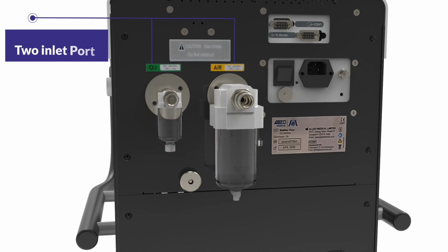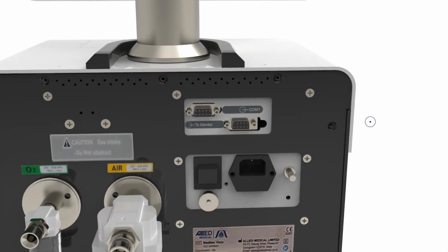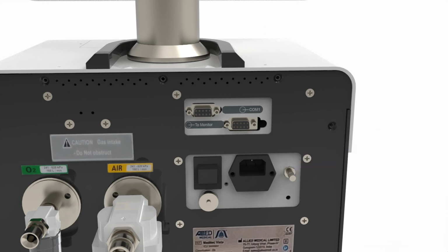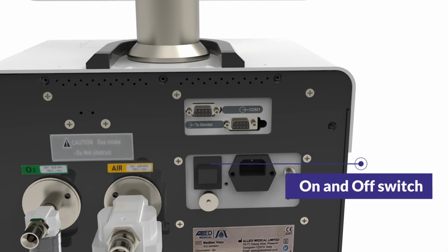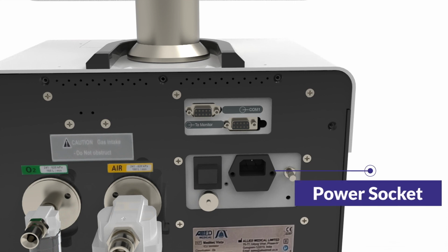The main unit of the ventilator consists of 2 inlet ports, one for air and the other for oxygen. Both the ports consist of a water trap for the collection of moisture. The communication port is used for connecting the main unit with the controller or monitor. The RS-232 port is used for upgradation of the software. Below is the power switch that is used to switch on the ventilator. Next to it is the power socket used to connect the main power cord.